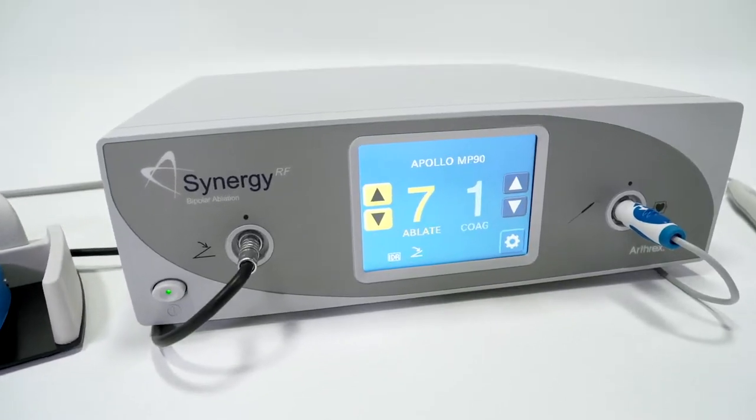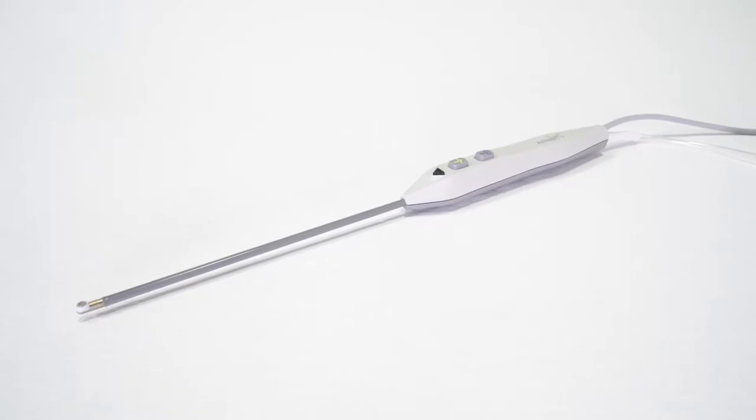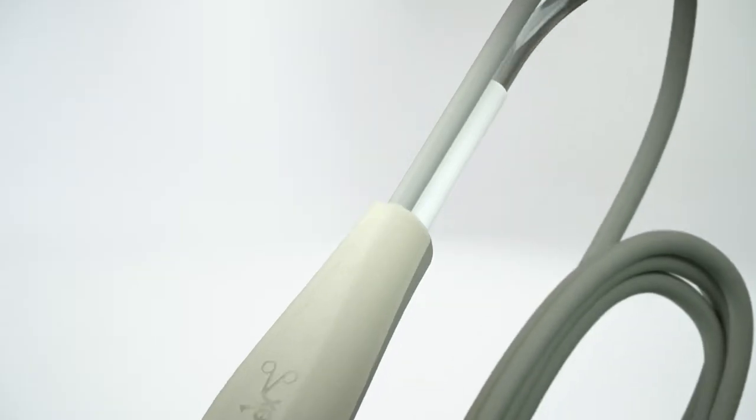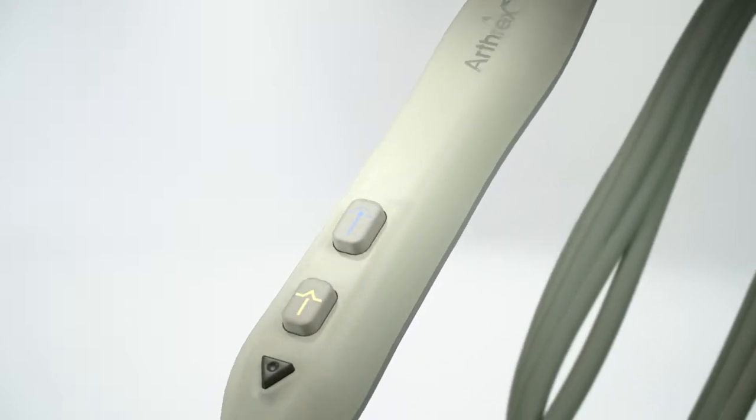The cutting-edge system uses a console, single-use RF probe, and a foot switch with convenient pedals for complete control.